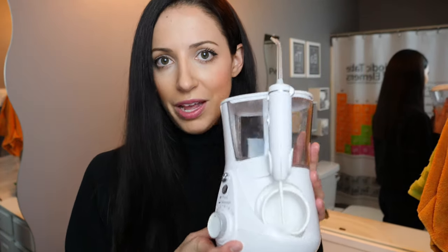In all, keeping your water flosser clean is important — not only because of germs, which I focus on mostly, but also because of the mineral deposits that can build up in your machine. Keeping it clean can not only keep you safe, but it can also prolong the life of your water flosser and allow it to perform effectively. Using both my personal daily tips and my every one to three month tips, I feel like I keep my water flosser performing at optimal level and keep it clean.